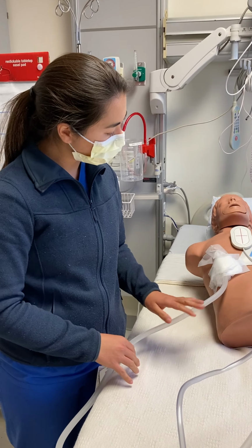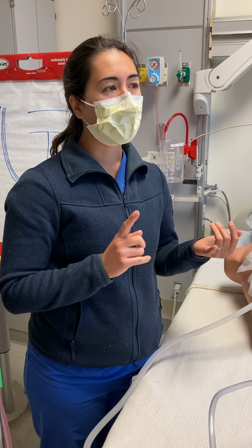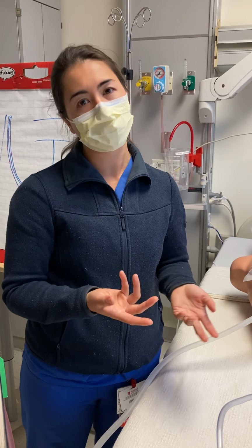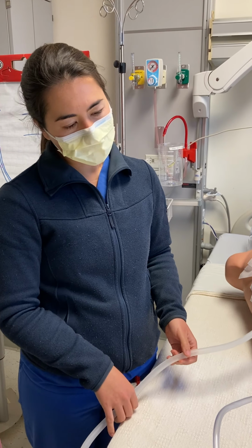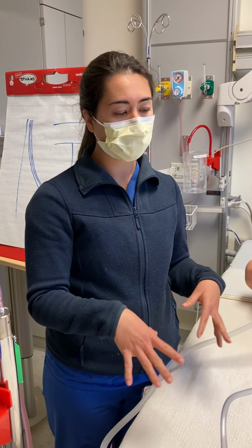We don't usually like to do that on patients who are freshly post-op after a lobectomy, or where we're worried about increasing the pressure inside if there's a more delicate stapling. If we ever had those patients, we would let you guys know. But for the most part, we're worried about that after things like decortications. So I think those would be the main things that you would look for with the tube.